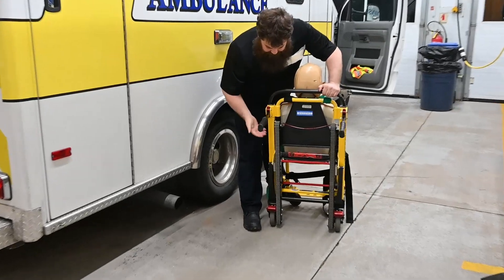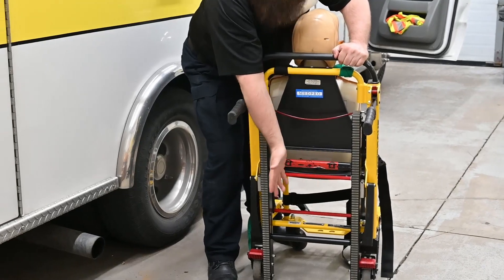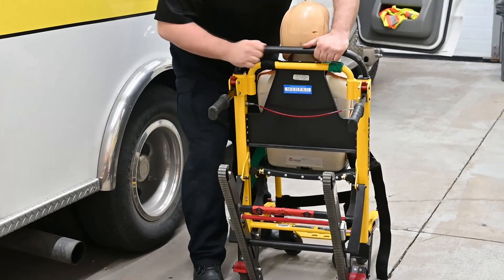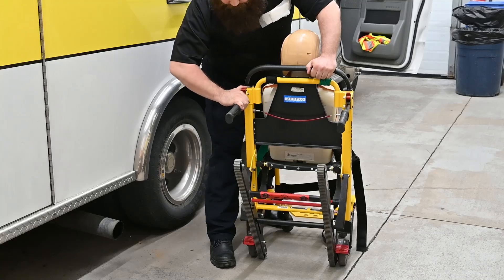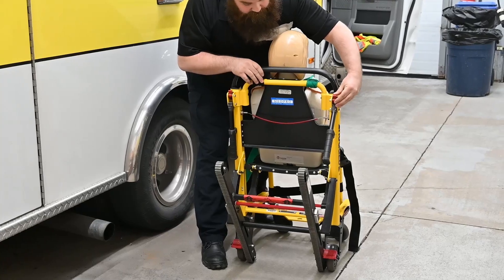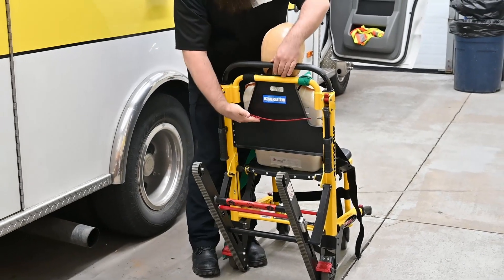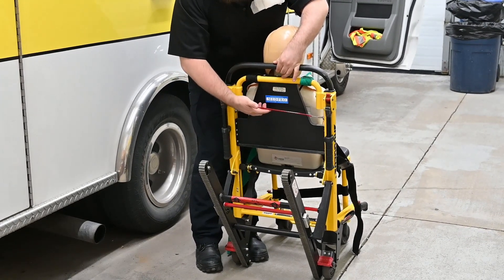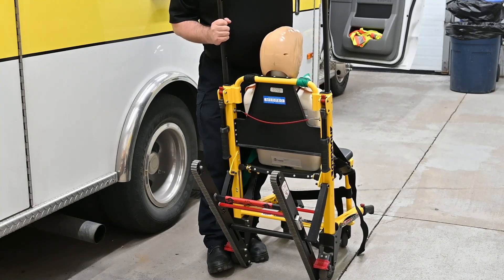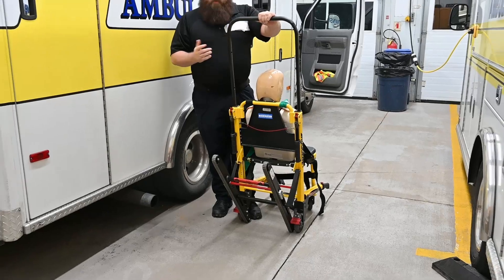From the back you can see it has a track system. To lower the track system, you lift up on the middle bar and slide out until you hear a click. Once you hear that click, you can lower your two wheelchair handles by depressing the red buttons and sliding the handles down. Now at this point we have this steel cable marked right here — you can pull that to raise the sled, as I like to call it.